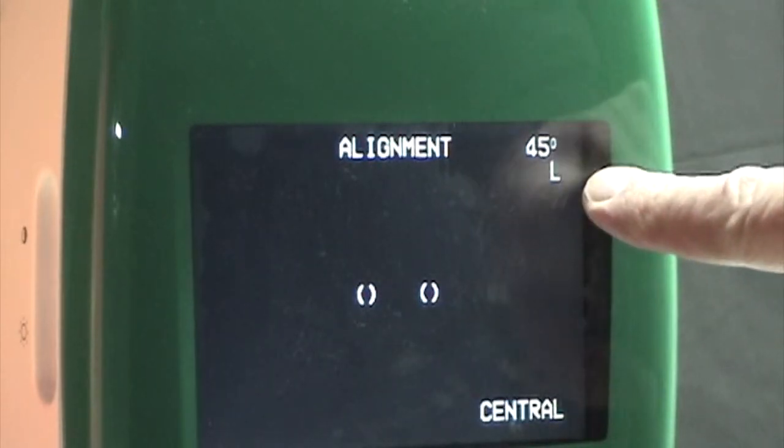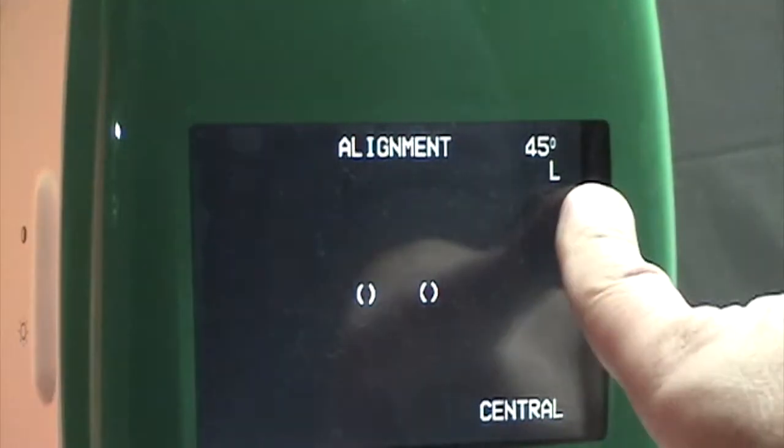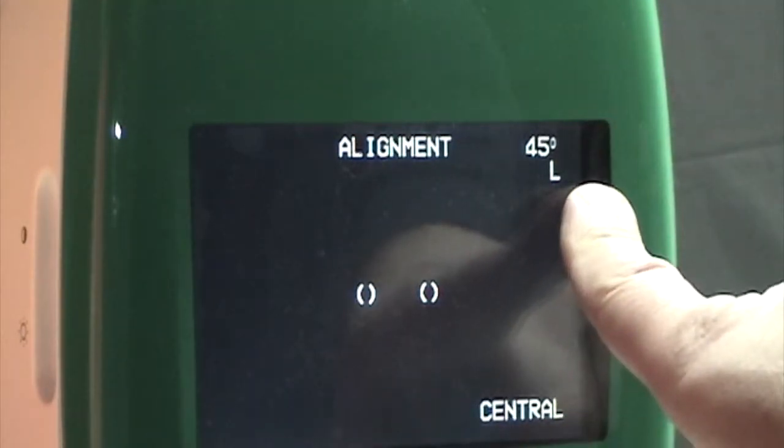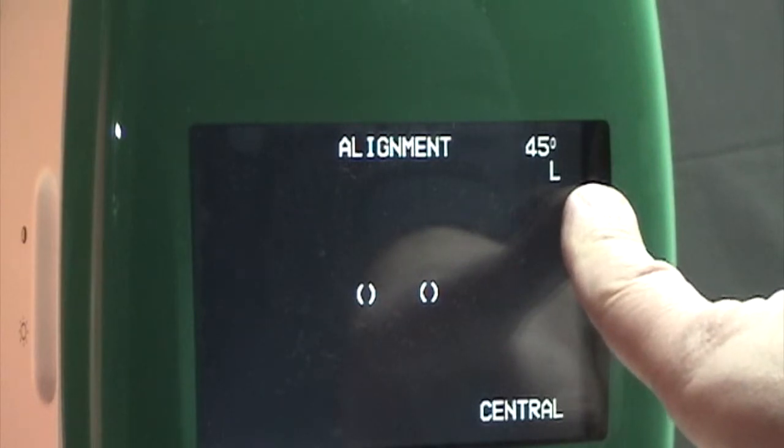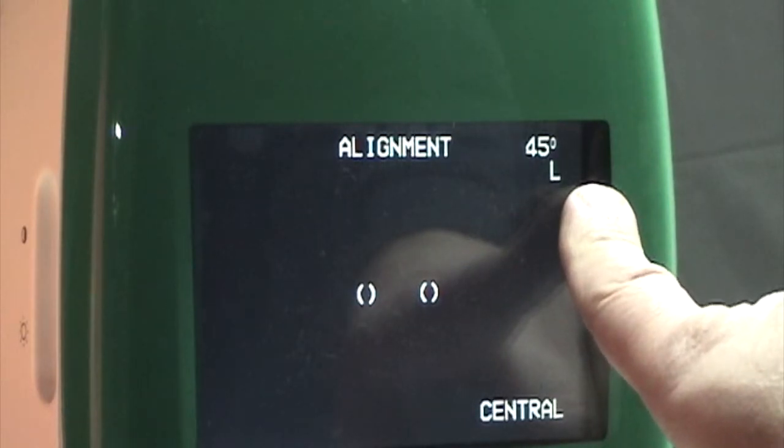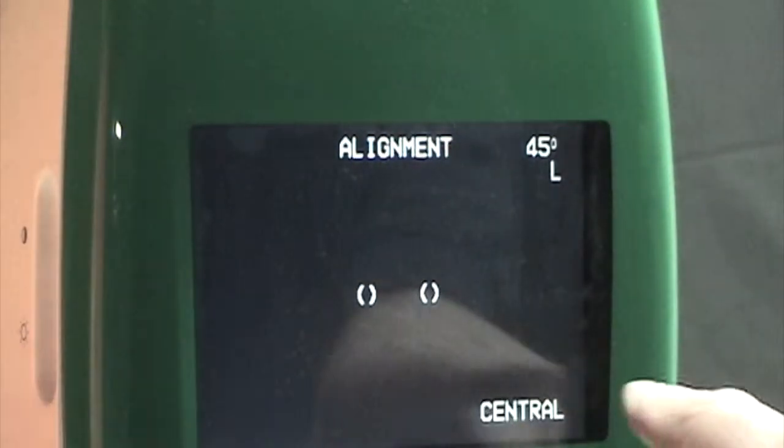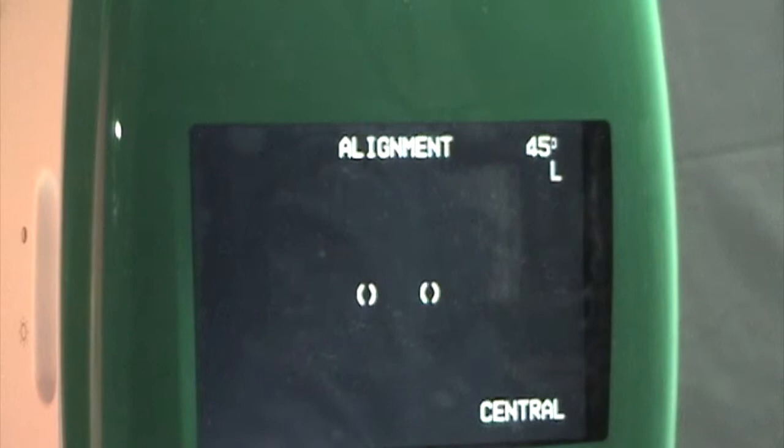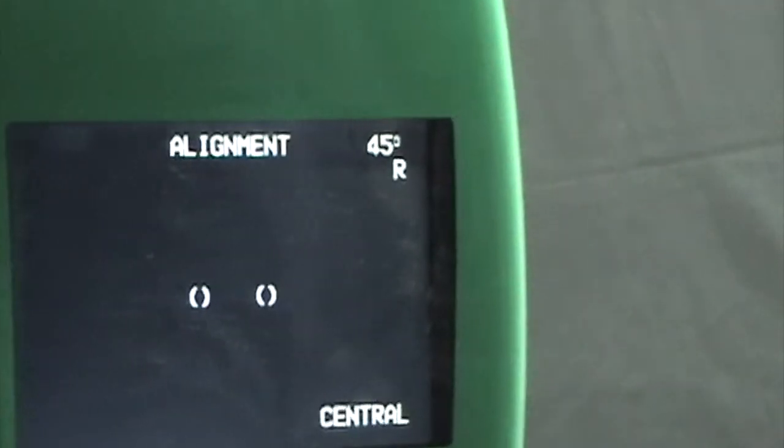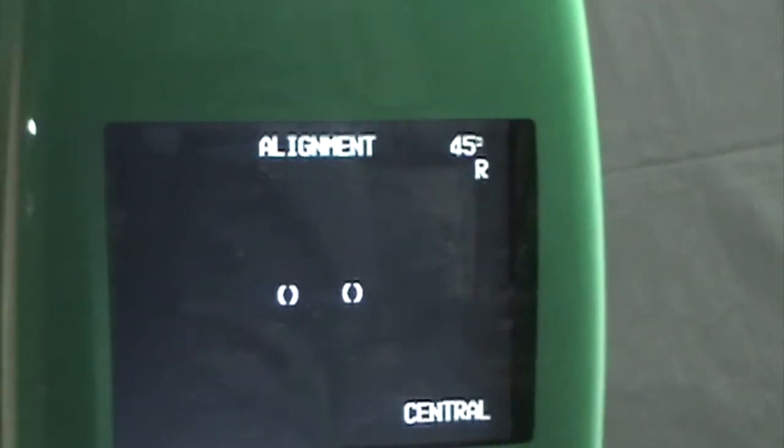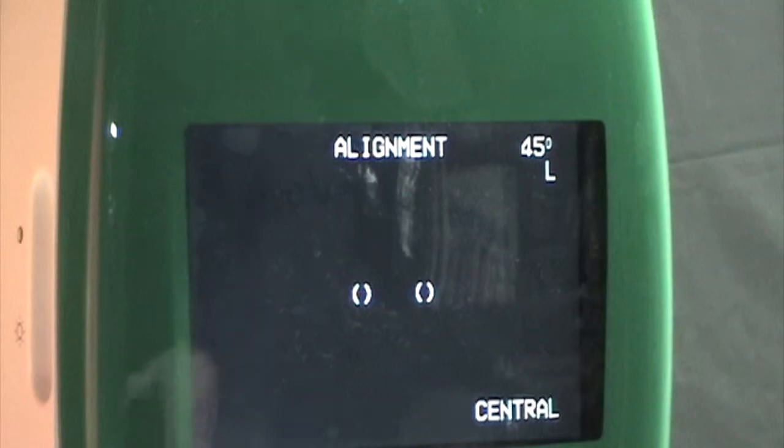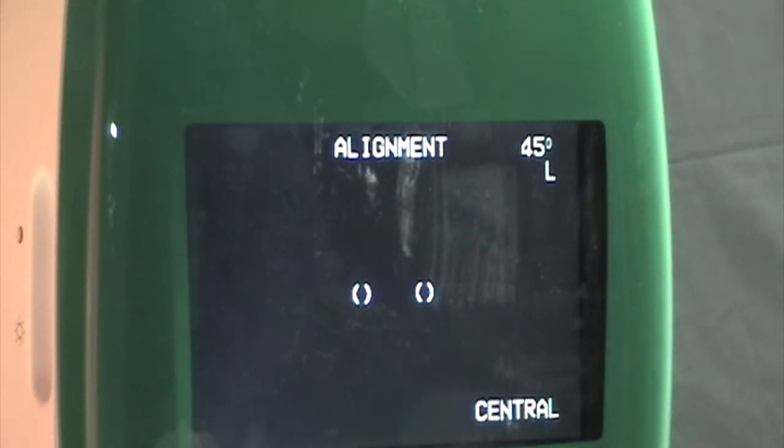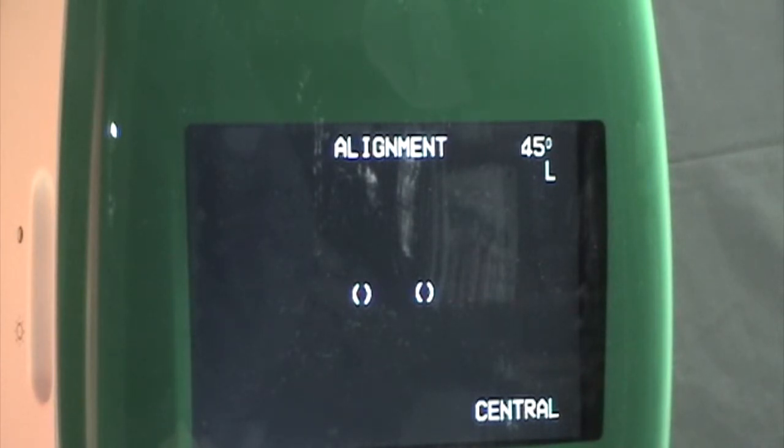Chances are the sensor that operates the left-right indicator on the camera is not operating properly. It's getting stuck on either right or left, meaning that the fixation target is not changing to the right position. This one is actually operating properly, but when it doesn't change, it will flicker sometimes between right and left and will not put the fixation target where you need it, so the patient is looking in the wrong place. It's a simple enough problem to fix and I'm going to show you how right now.